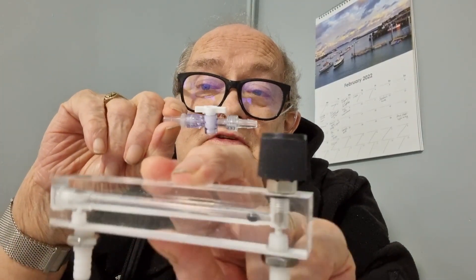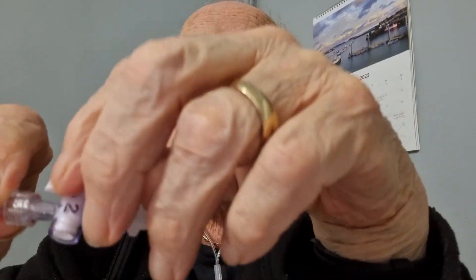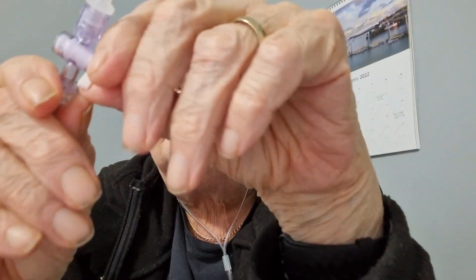2.5 is as close to 2 as I need. And the size of it — well, that's it there. You can see the difference — the gas regulator is quite heavy, but this device has no weight at all. It's got a little tap on it, and if I turn it round you can see there's a marker on it. The marker shows that it's on 2.5, which it needs to be on, and the other position is the full flow through.